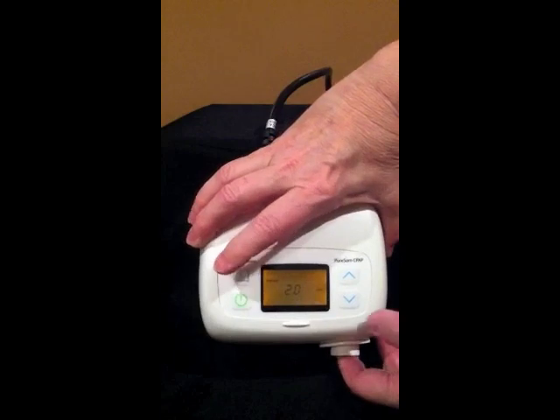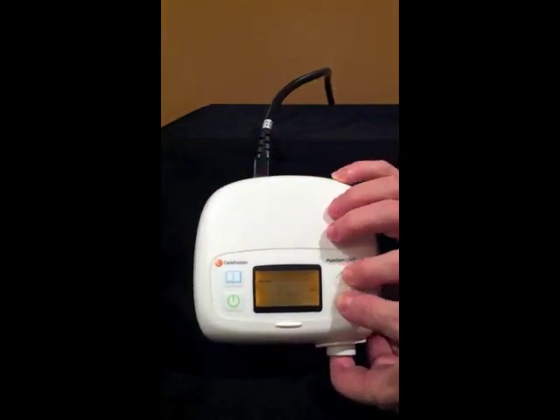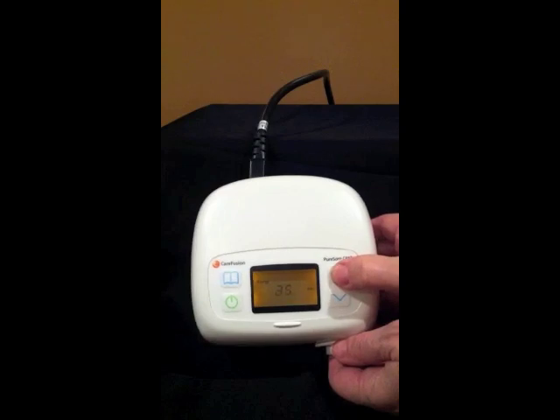While hitting the menu button one time, it allows you into the first setting. Depressing the up and down arrows, you'll see it begin blinking, and you can adjust anywhere from zero to 45 minutes for your patient's delay time.